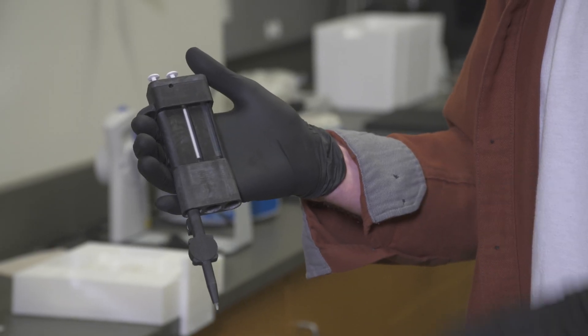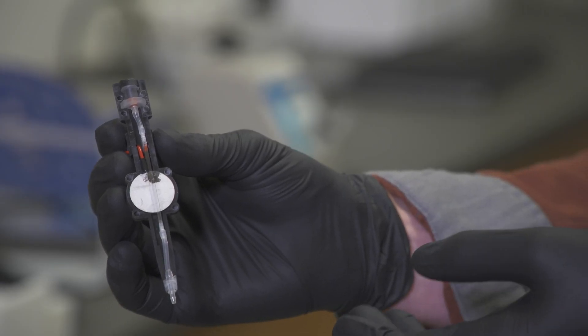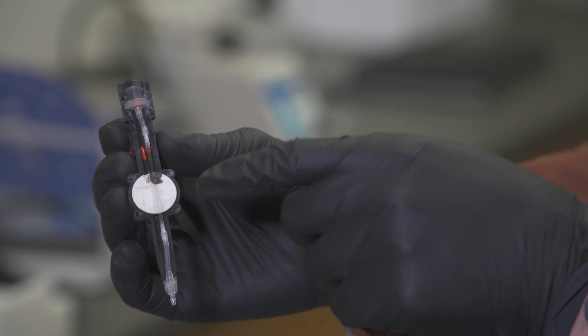This is the acoustic pipette. We developed this pipette to basically contain all of the components necessary to run an assay, in order to actually measure biomarkers from really small blood samples.